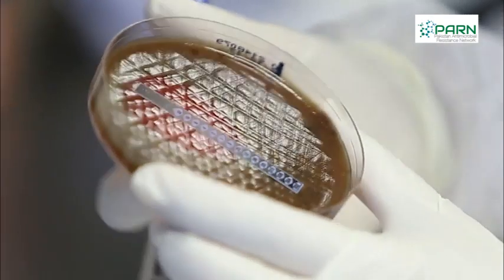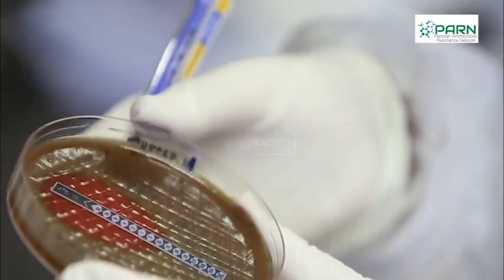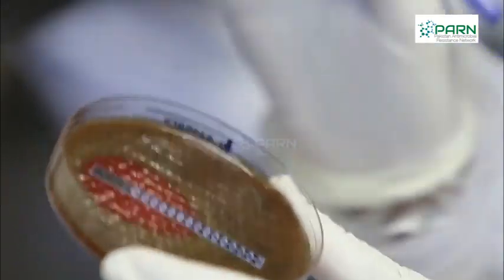If ellipse is uneven with one end slightly higher than the other one, always note the upper value. If the difference is more than one dilution, the test should be repeated.